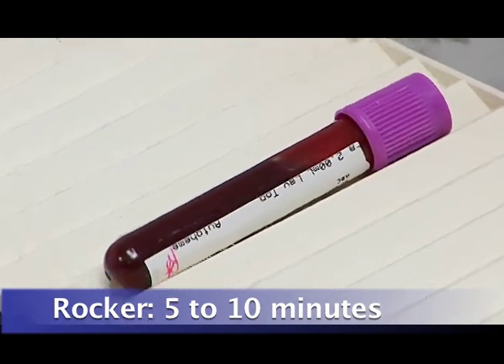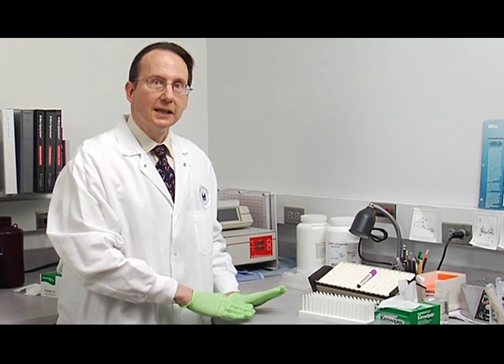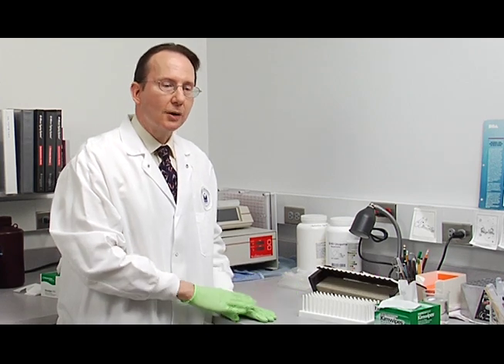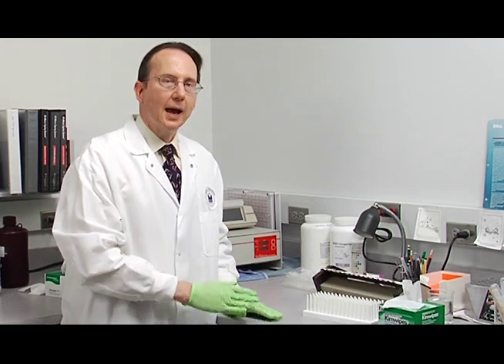You should rock it no longer than 15 minutes at one time. If you need to put it back on the rocker, that's fine, but no longer than 15 minutes at one time. Otherwise, the cells begin to break down and all your counts will be decreased.